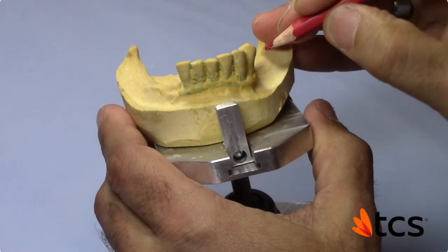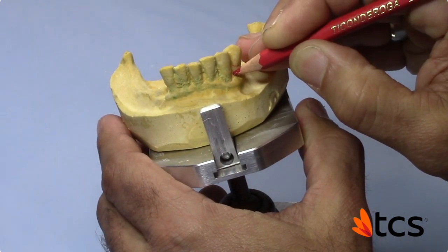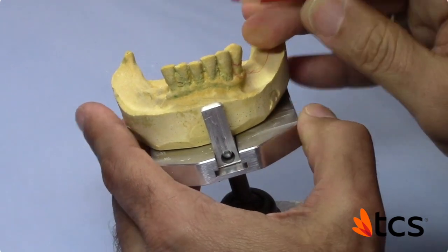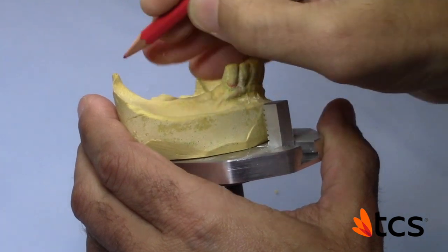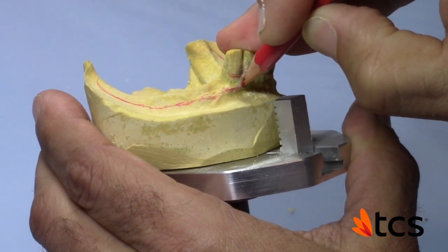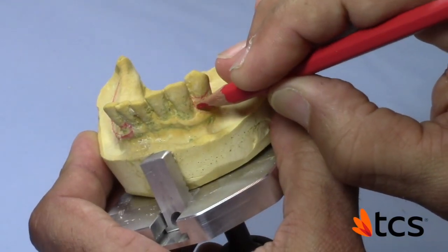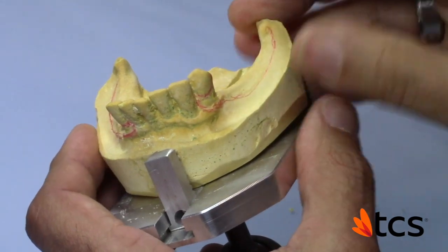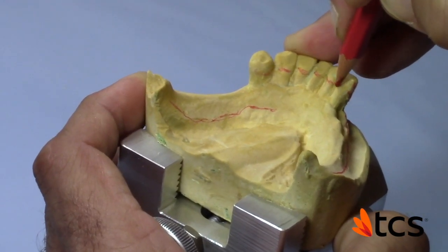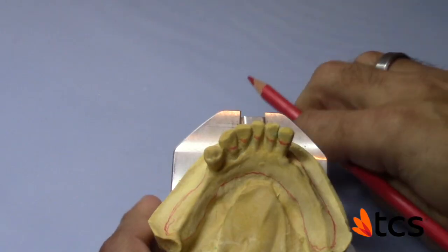This is the key area here — the contact has to be flush. We're going to go a little bit higher here. This length is good. This is a case where I really want to control my retention, so I'm not going to put a lot of block-out here, because if it's too loose it's a lot easier to trim than to add. That's our rest area.